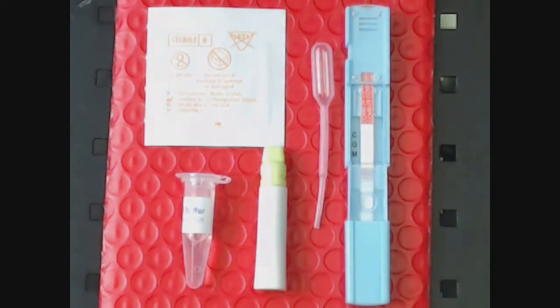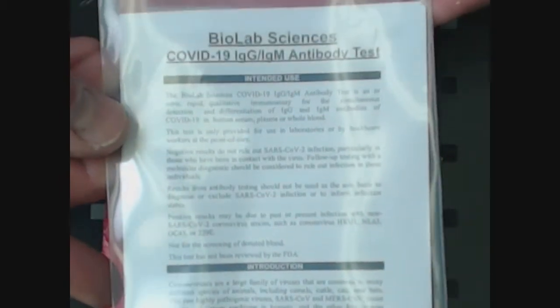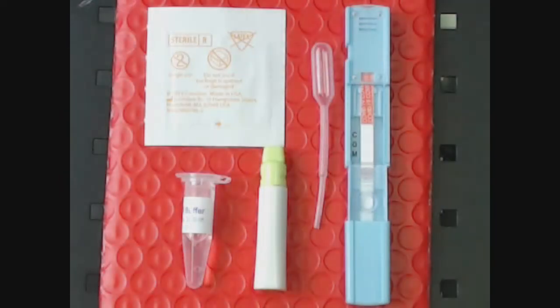When you open the kit for this COVID test, everything you see here is going to come in this small baggie right here. This is the instructions for use. Read it if you like, but I'll cover everything you need to know about it.